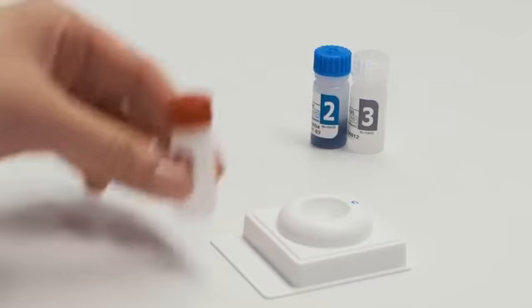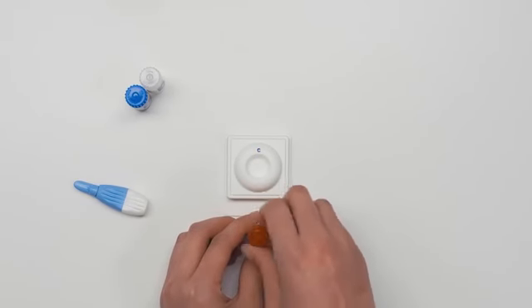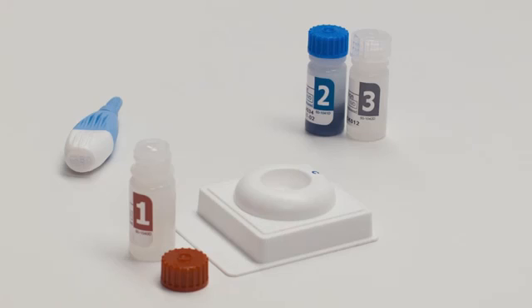Bottle one. Remove the cap and place the bottle on a flat surface. Place the cap nearby to recap the bottle after you add the blood.